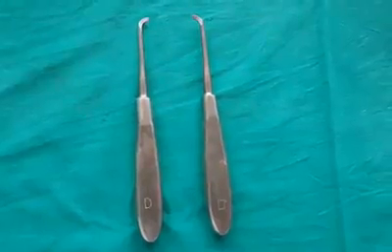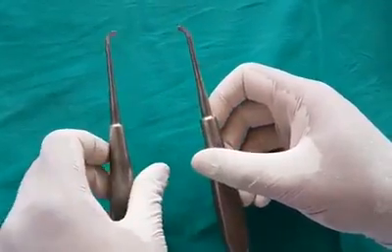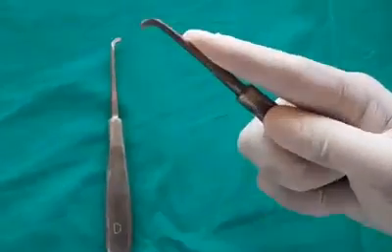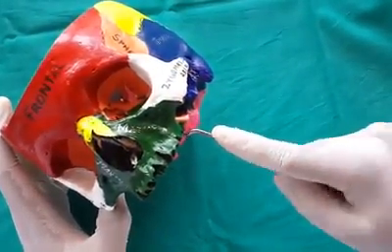Warwick James elevator is a paired instrument for right and left sides. Curved and straight varieties are available. It is usually used for third molar extraction.